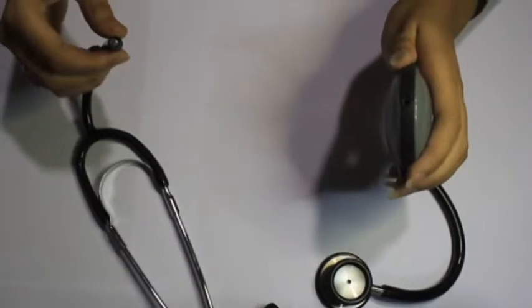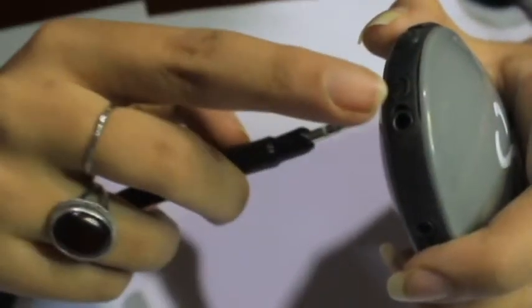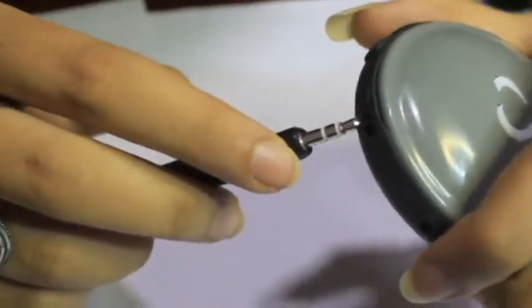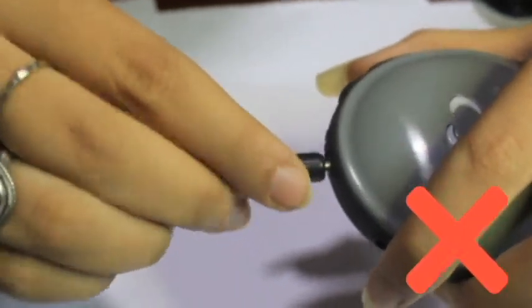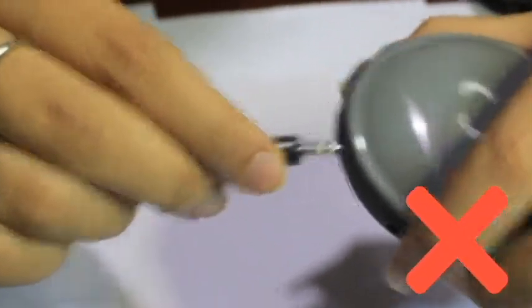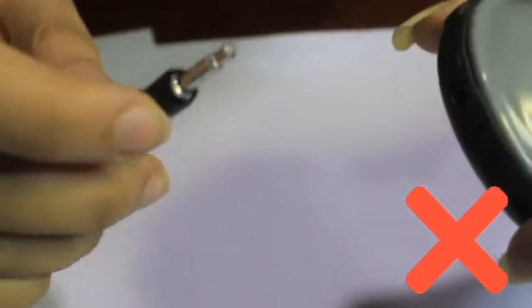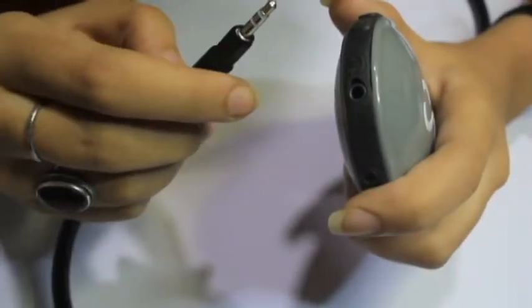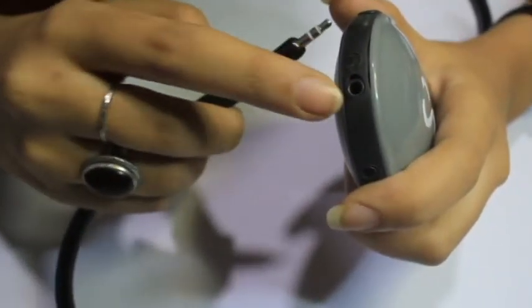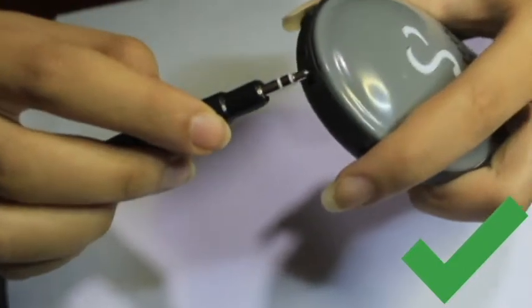One, that you're not plugging the pin of the headphones firmly into the jack. This is one big mistake where you leave the pin out of the jack halfway through. The correct way is to push the pin firmly into the jack.